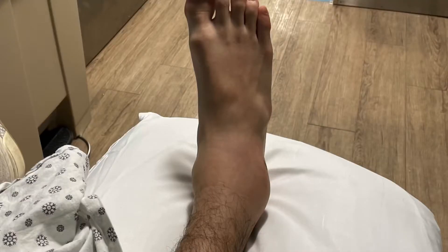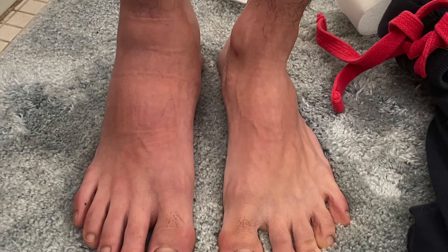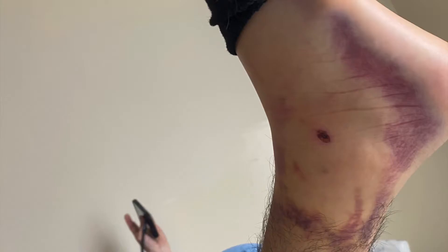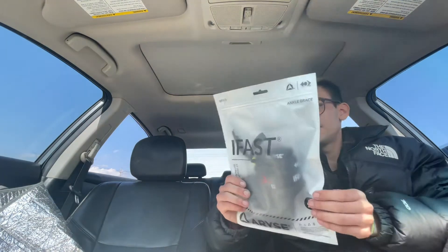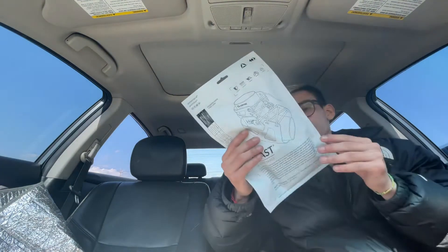You're gonna see pictures and everything. I ordered the iFast because apparently it has great reviews and some of the best support. I need the support now because I don't think I have the ligament in my foot anymore — I swear I heard it pop. But yeah, this is the initial reaction video, this is my first opening.